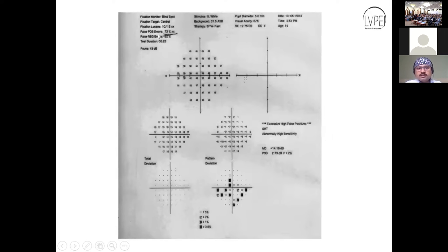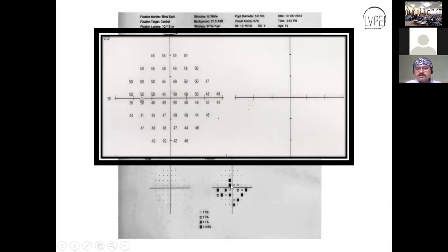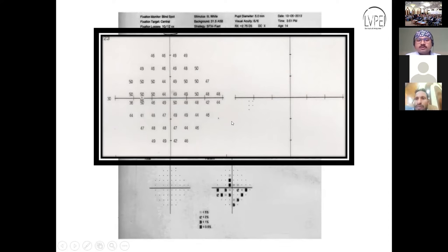The next artifact is high false positive, where we see a totally white scotoma. It means the patient was not attentive or was too enthusiastic — just keep pressing the button. Here, all thresholds are near 50 or above 40–45. In false positive, the pattern deviation is worse than the total deviation, unlike normal. This trigger-happy patient behavior causes white scotomas, which is another kind of artifact.